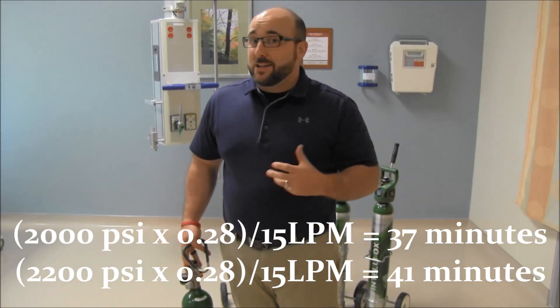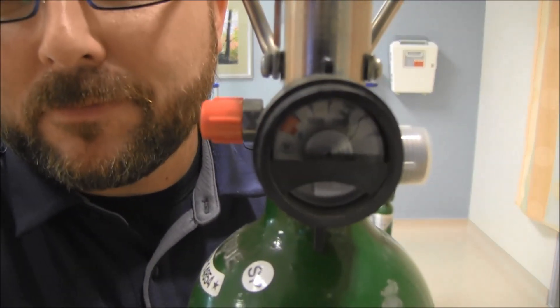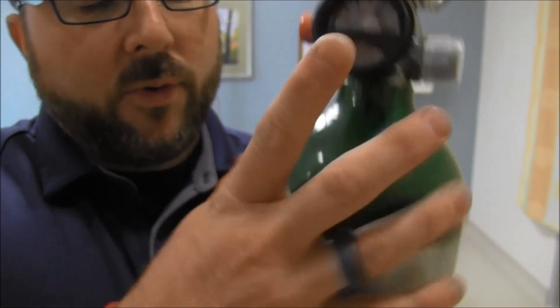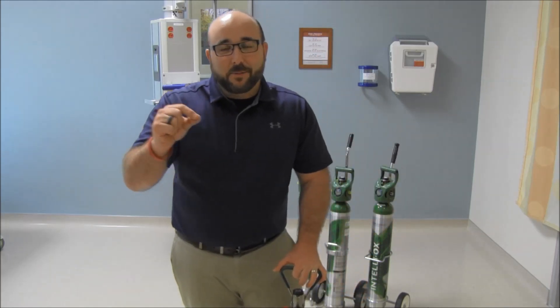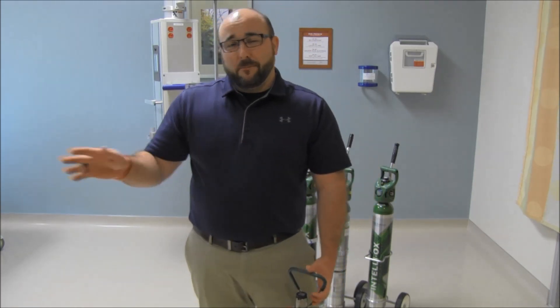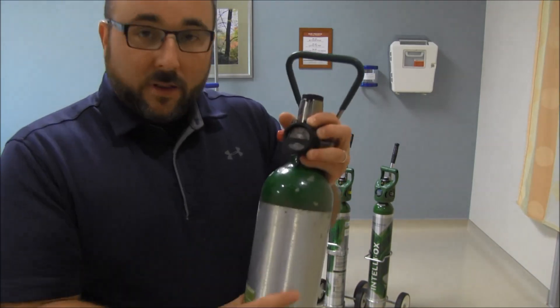That's not bad — I can usually get you almost anywhere. But the thing is, a lot of our tanks are only partially used, running on 2 or 4 liters, and once it gets down to about 500 PSI — you can see the gauge has a red area there — a lot of people stop using it at that point. The tank gets sent back to the manufacturer, they refill it, but all that extra oxygen is lost. We're paying for the refill and the tank rental but wasting all that remaining oxygen. Wouldn't it be better to use a tank until it's nearly empty and also eliminate the whole PSI pressure-per-square-inch thing?